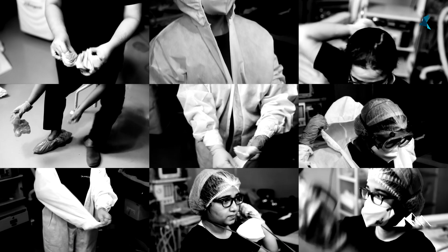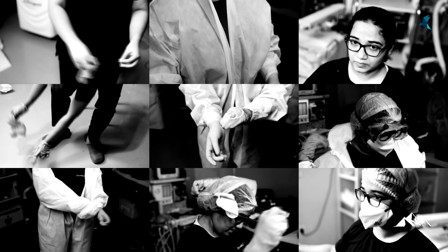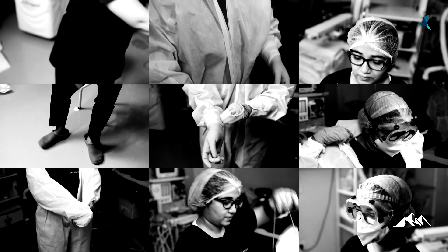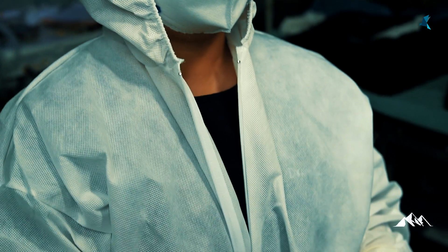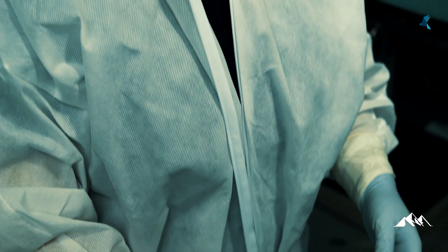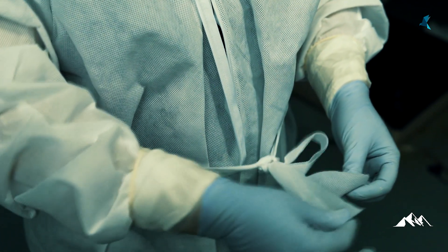After the patient has been examined, the removal — doffing — of the PPE is a critical and important step that needs to be carefully carried out in order to avoid self-contamination, because the PPE could by now be contaminated. Step 1: unzip and untie the gown. This is done with the gloved hands. Wearing two gloves during donning gives extra protection. Before unzipping, hand hygiene may be performed if the hands are visibly contaminated, using an alcohol-based solution if needed.